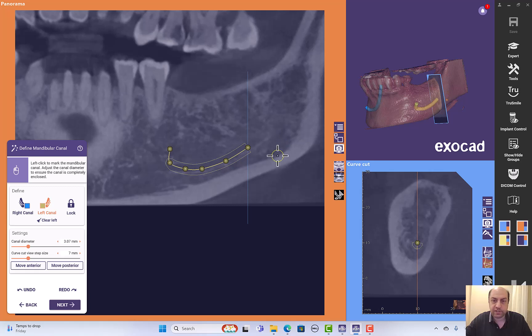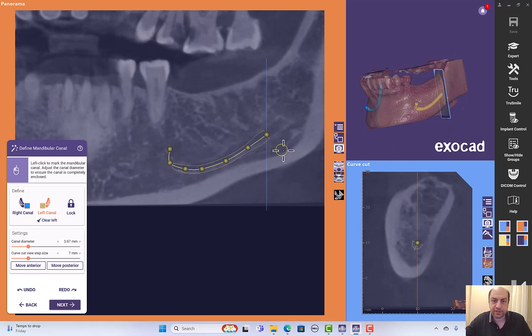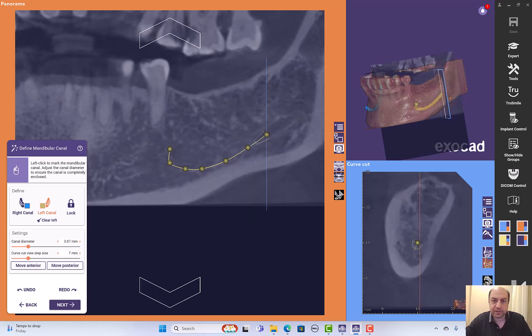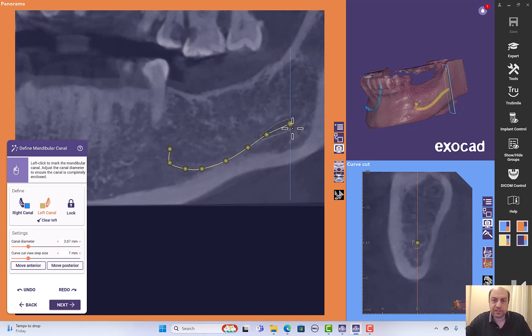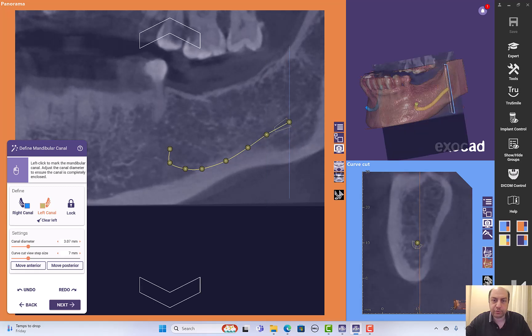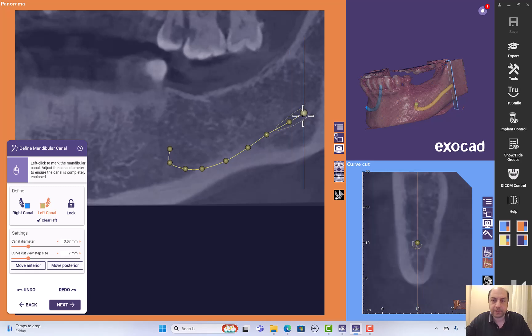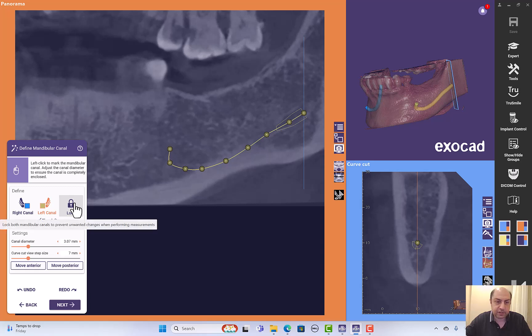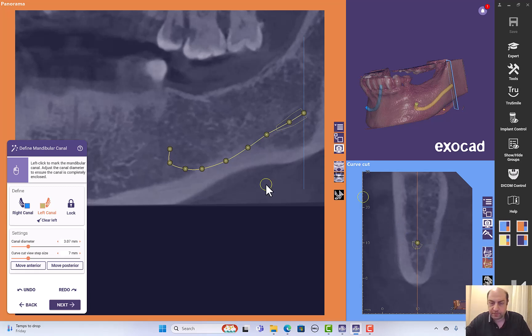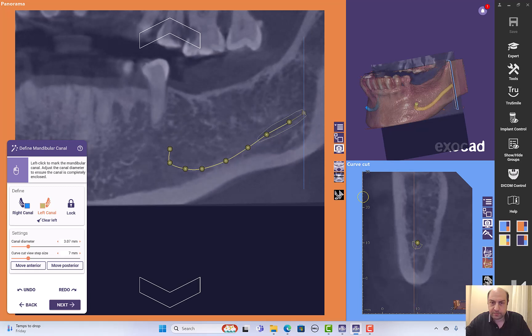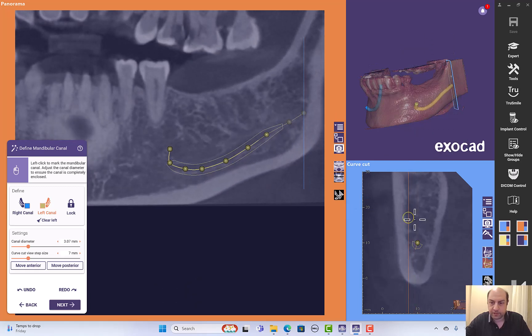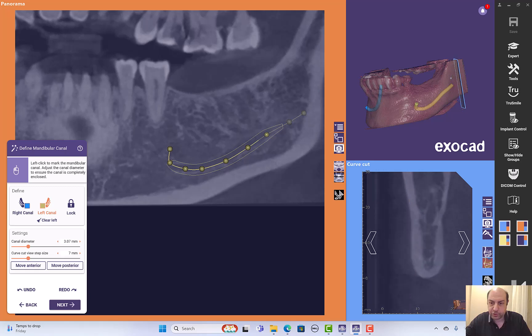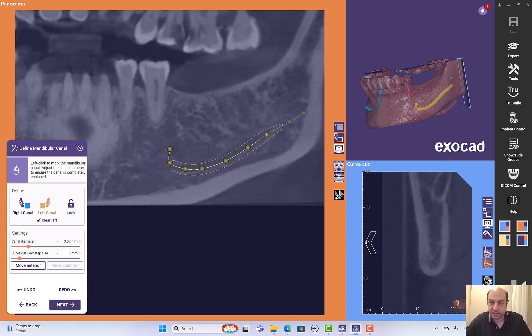I have to change the slices here to see the nerve. These are the two methods of how you would draw the inferior alveolar nerve. If I'm done, I can just place a lock. I have to check for the thickness here from the cross section or from the panoramic, navigate to make sure I did not do anything wrong. Looks good.